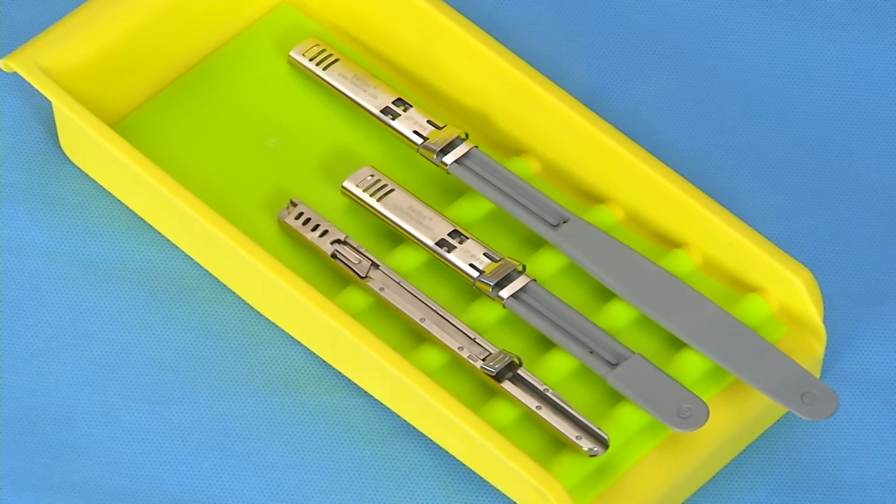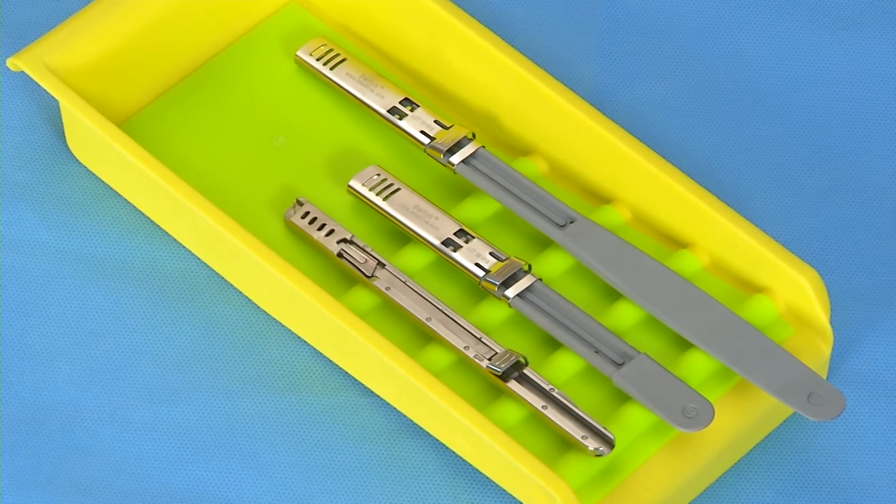That's the switch, the number three safety scalpel, and the number seven safety scalpel from Medline.